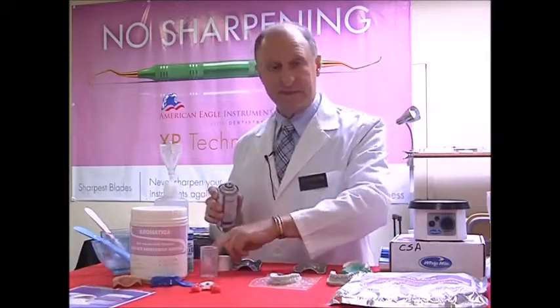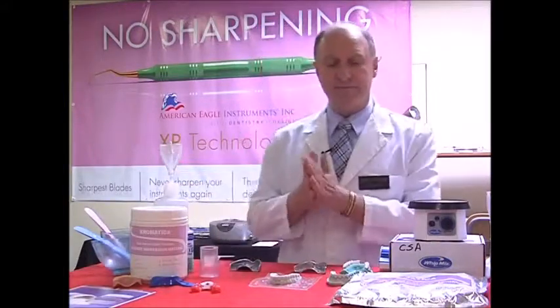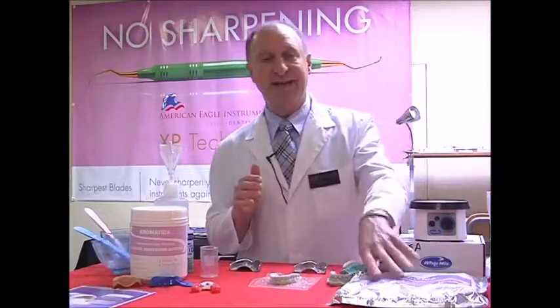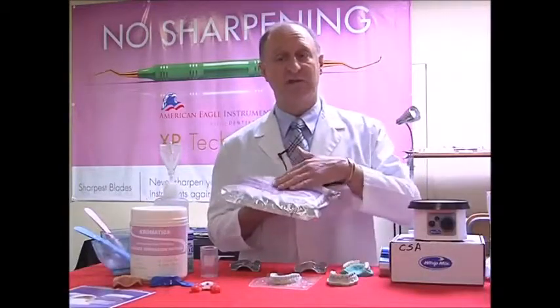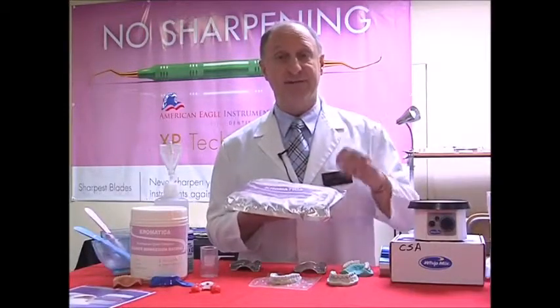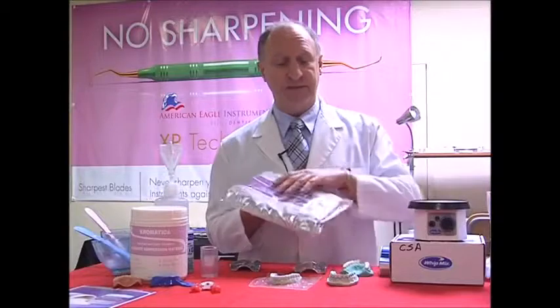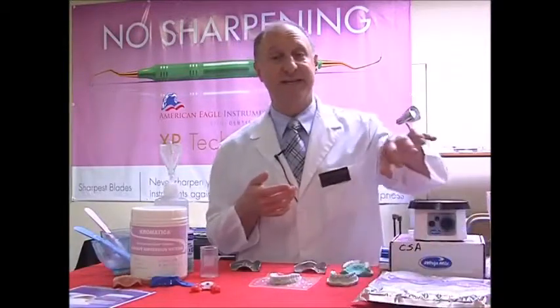Now we're going to have a look at how to mix an alginate. Let's talk a little bit about alginates. Most alginates nowadays are pre-packaged inside bags such as this. Why? Because it gives it a longer shelf life. There's a small amount of vacuum inside, and in this case we have 5 years shelf life, which is good. So that's going to keep us away from obviously any type of impurities getting inside.